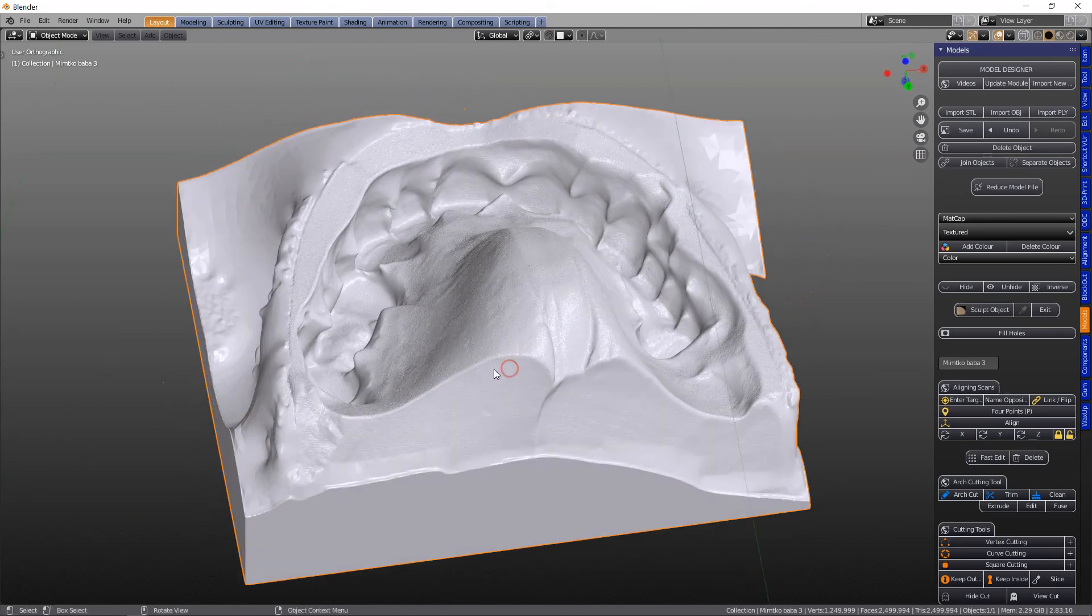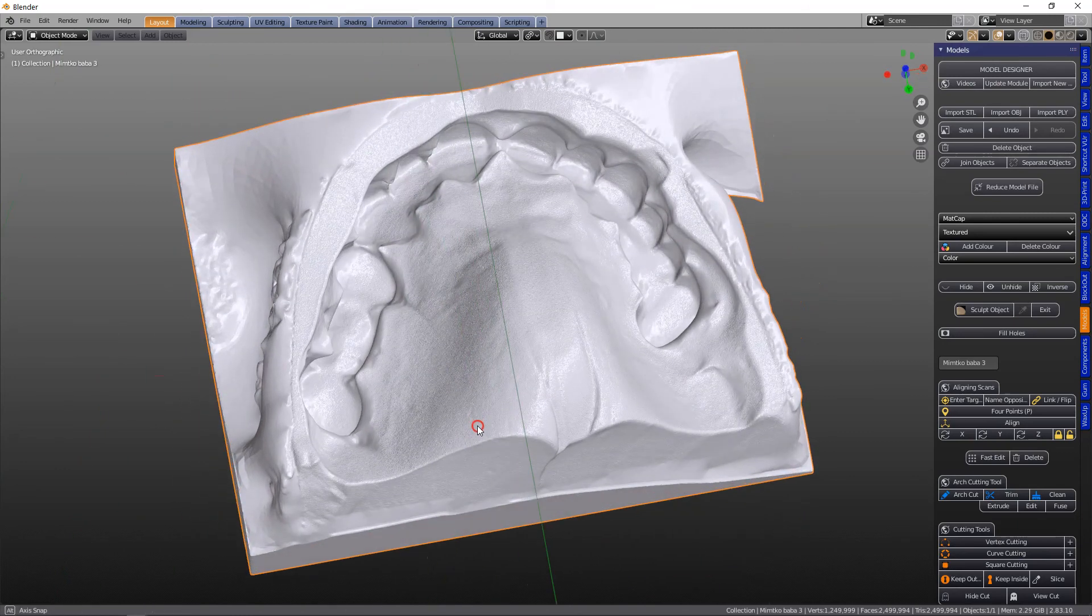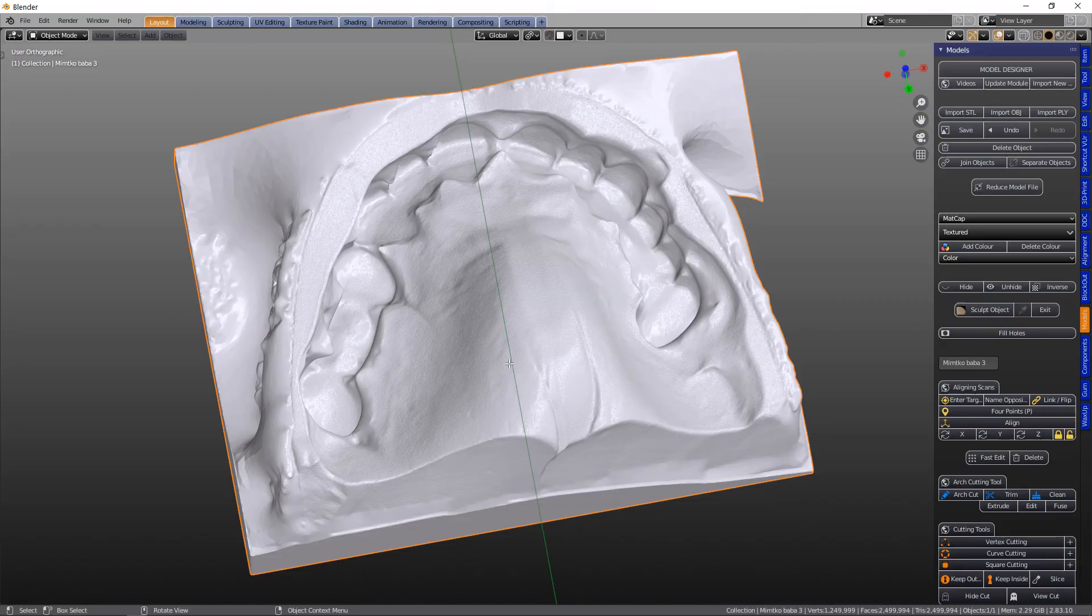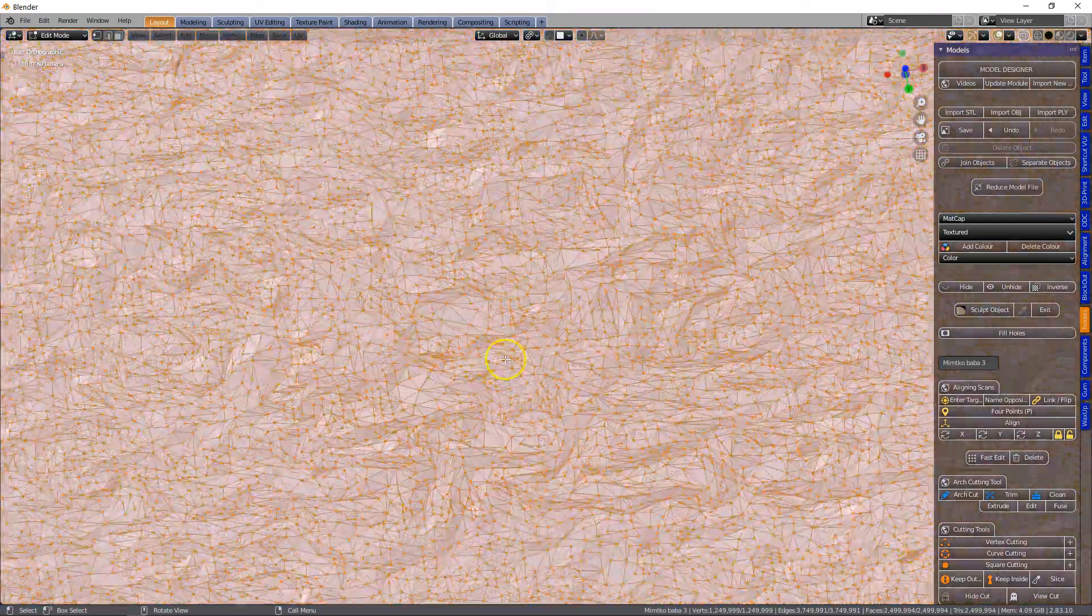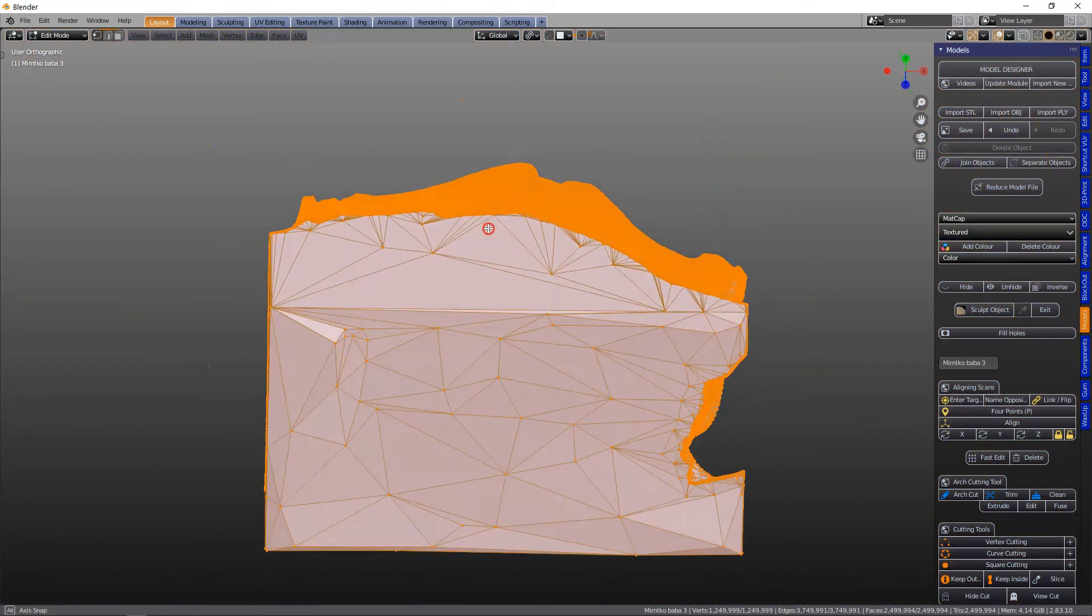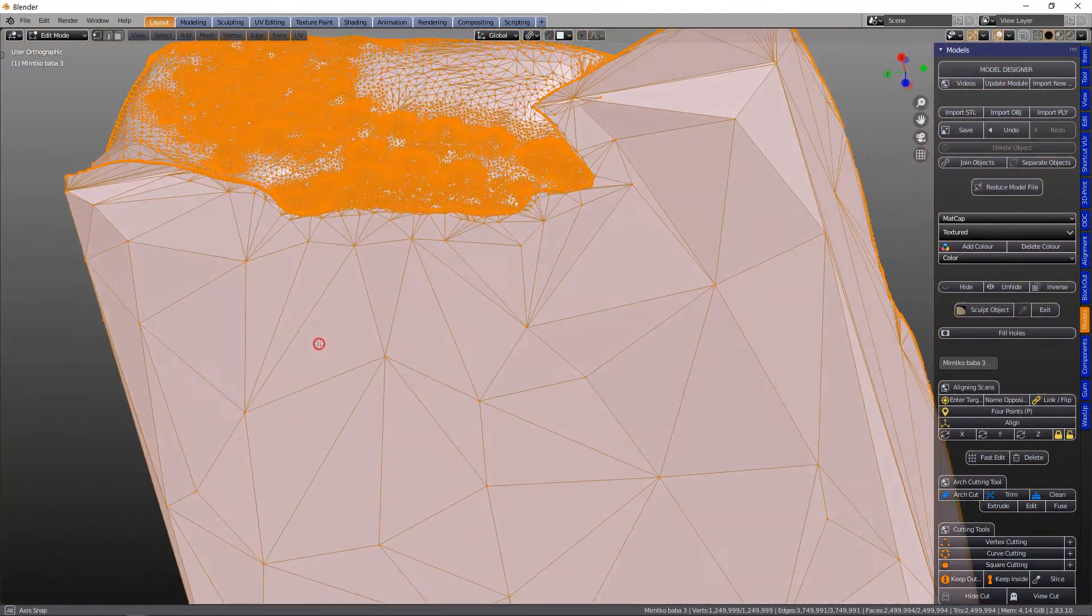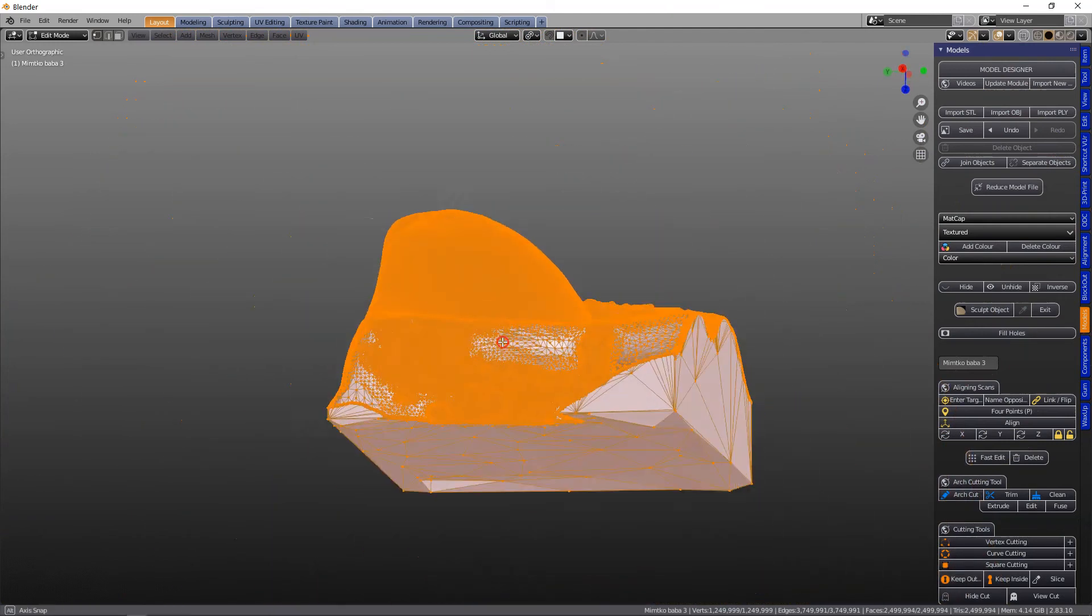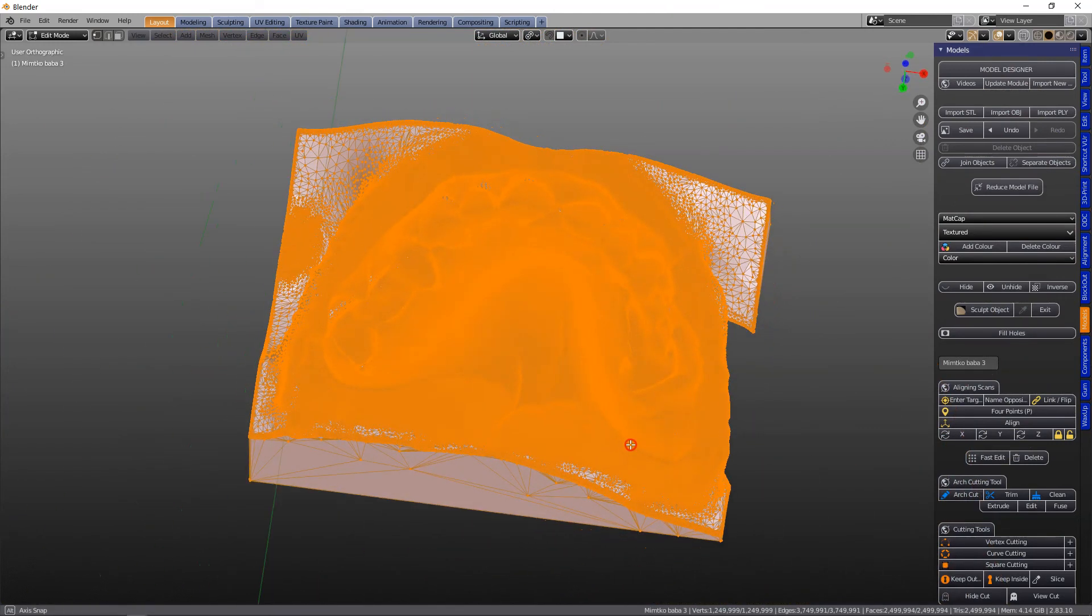Now the impression is very dense, so in edit mode we can see that the vertices are very dense and actually the surface is quite irregular shaped, whereas the base of it is very sparse, the vertices are very far apart.